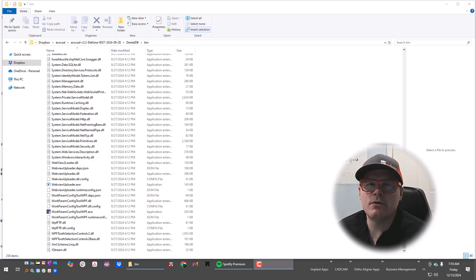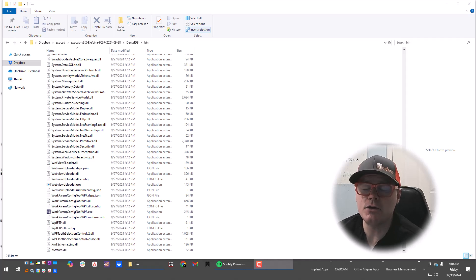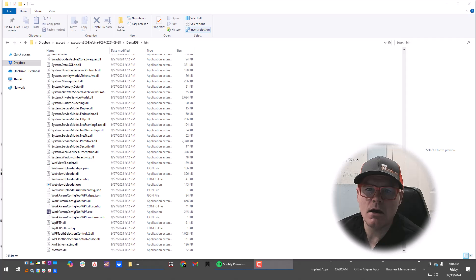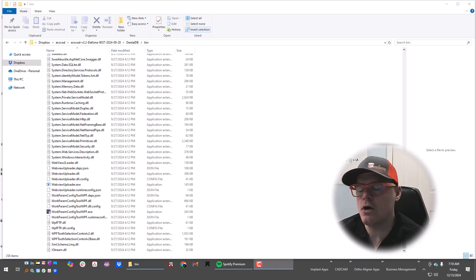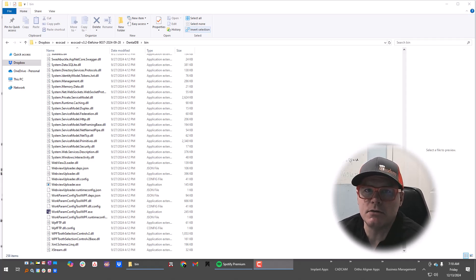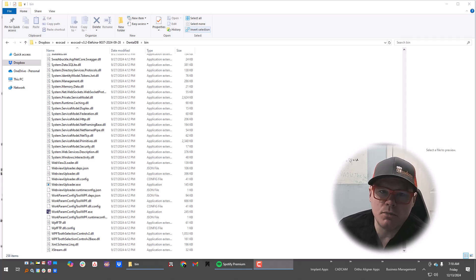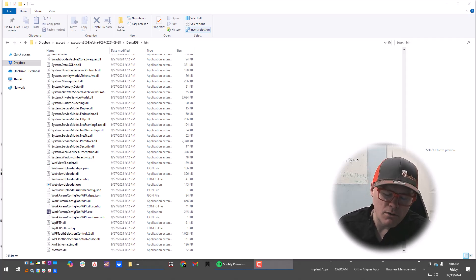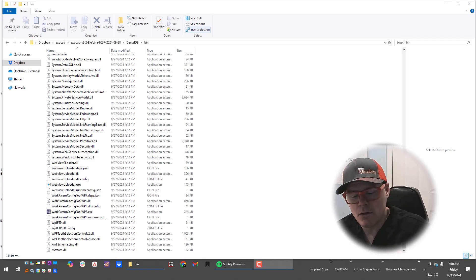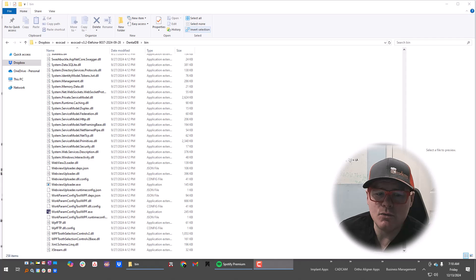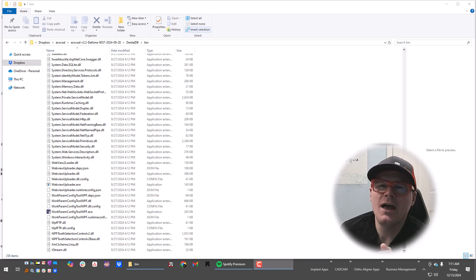Hello, ExoCademy. Today we're going over the work parameters configuration tool. If you don't know what that is, it's a tool built into all of your ExoCad downloads that allows you to set the parameters for all the different types of materials and all the different types of jobs that you're going to be designing. We also need to use it to set our parameters for AI crown design.